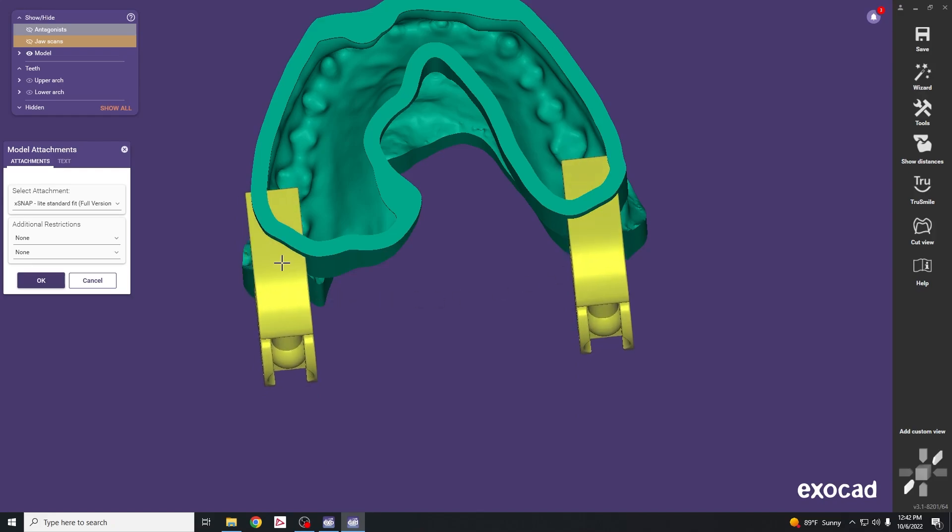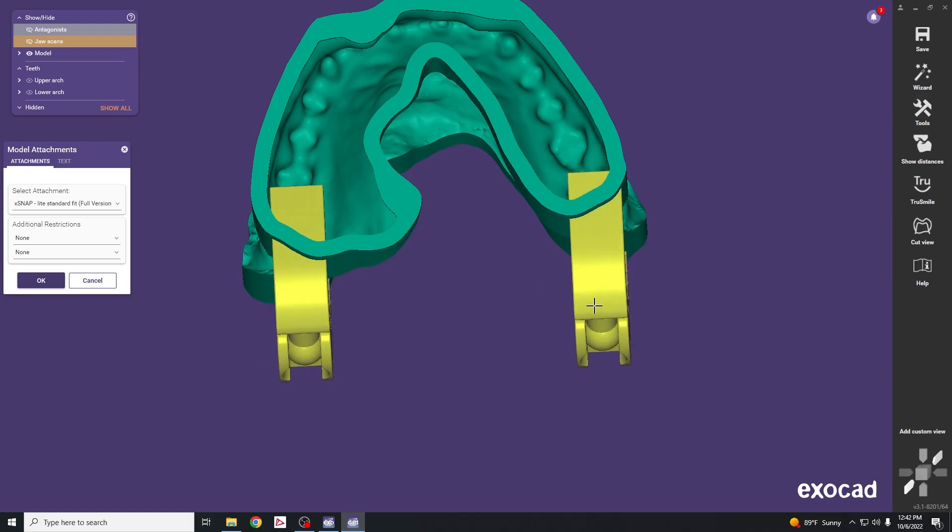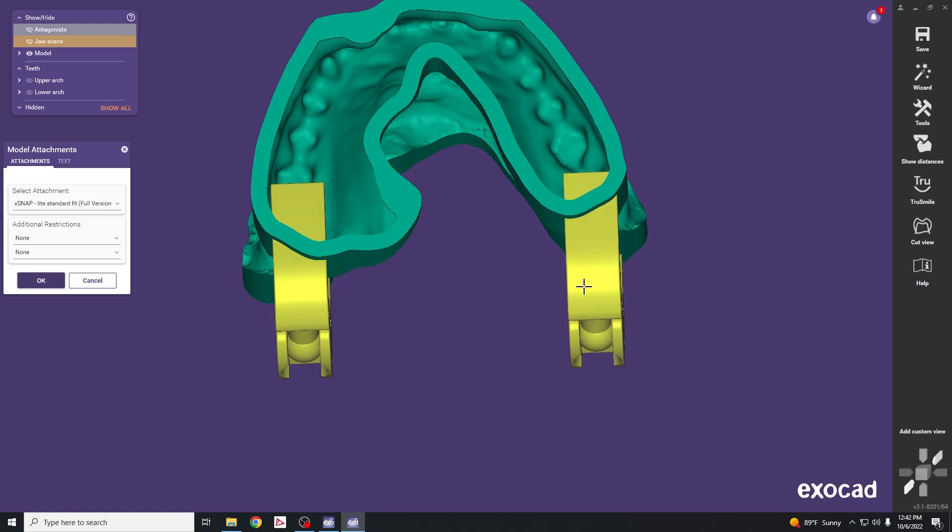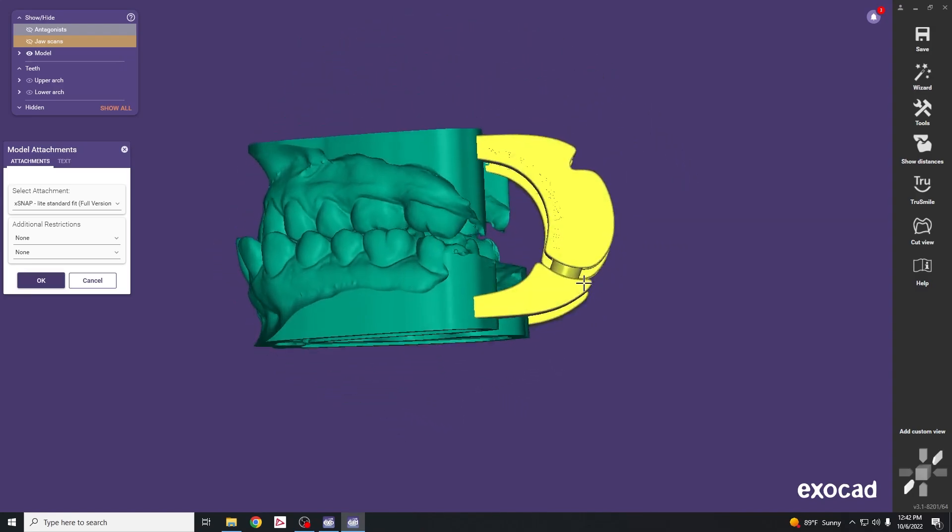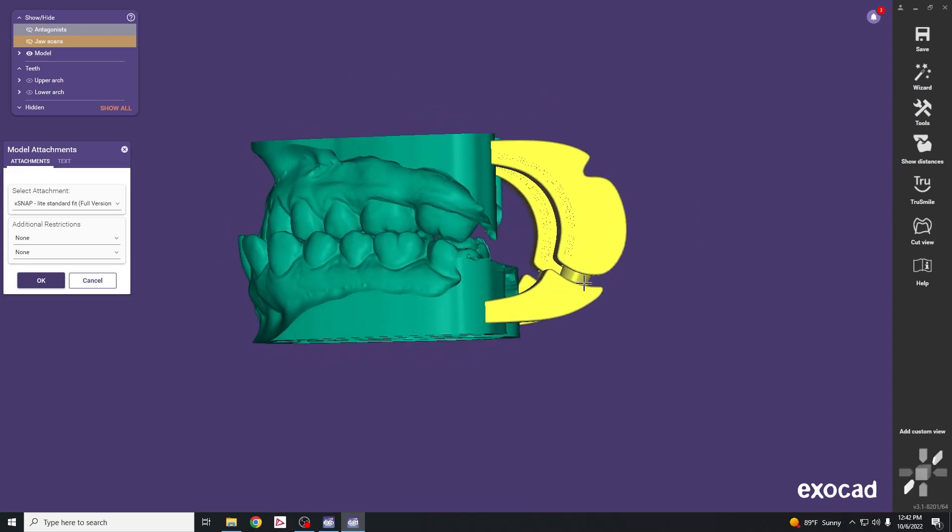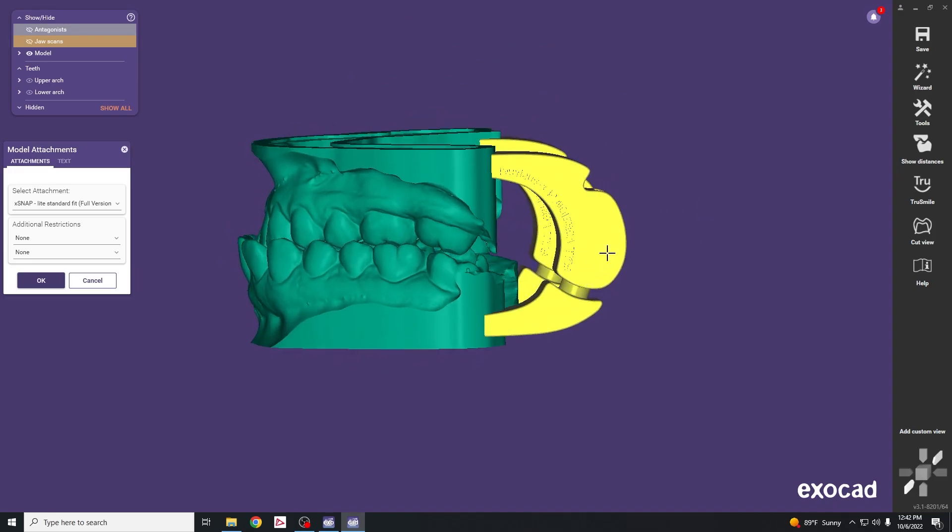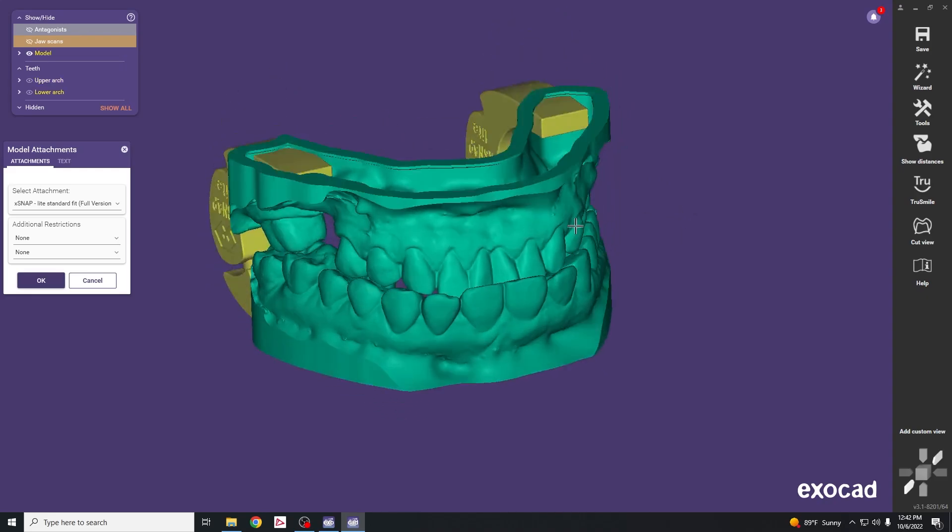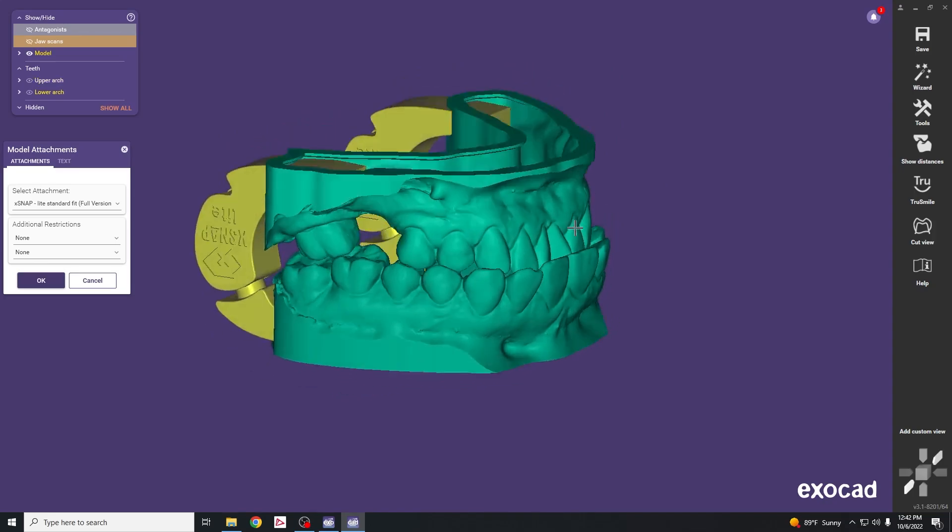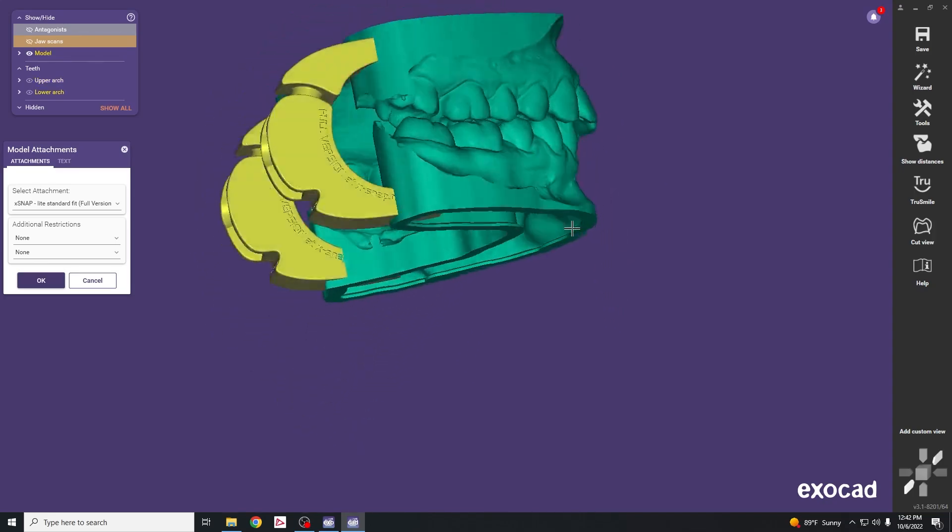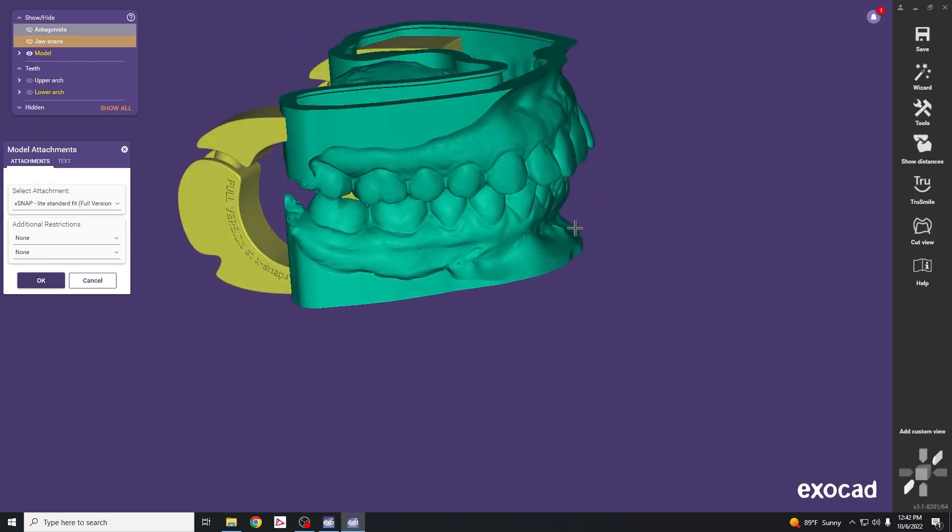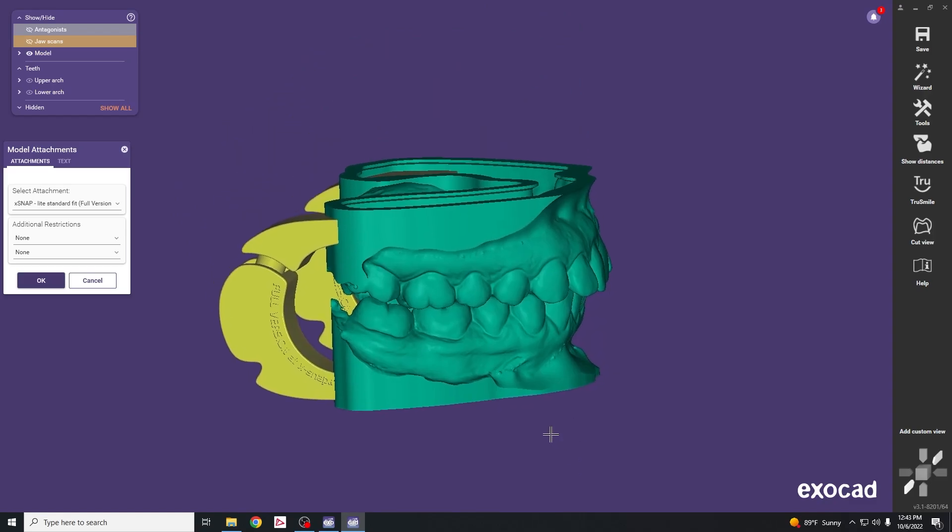It takes a little finessing to get both lined up in the correct orientation. As long as both are yellow it'll allow us to build the model. From this view you can see things are intersecting correctly. Try to minimize how much the extension sticks out posteriorly to save space on the print bed and minimize use of print resin.